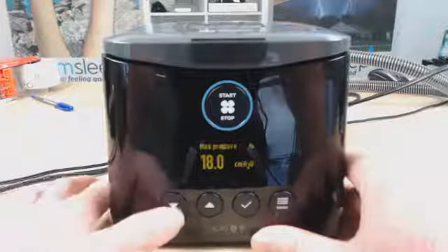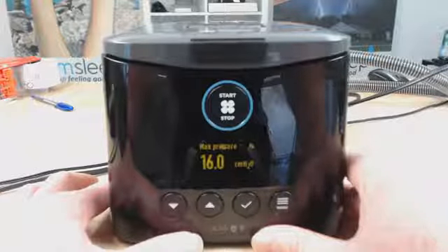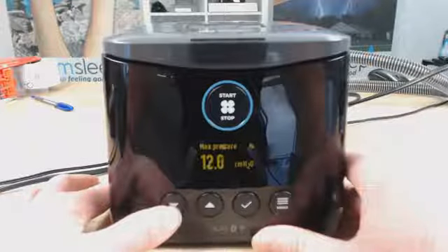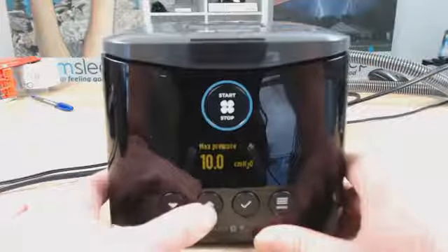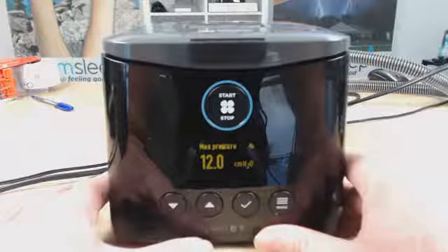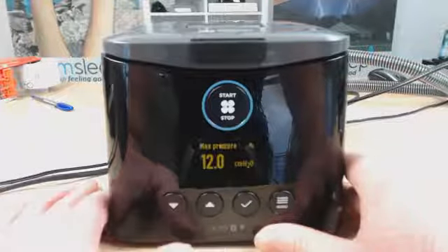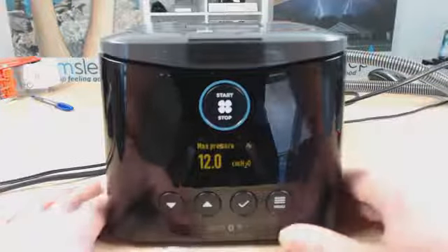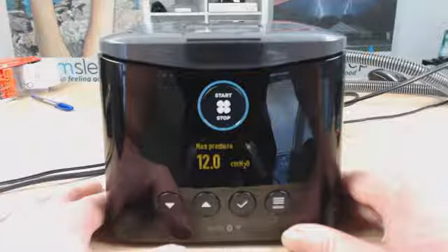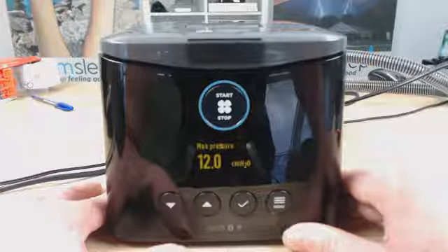But saying that, this can be a handy level to change if you're really struggling with the therapy pressure. What you can do is bring it down to a level that you're comfortable with, and gradually, as you get more comfortable with the therapy, increase the max pressure as you go. So you're kind of just easing yourself into the therapy. It's a really good way to get patients compliant, and a really good way if you're someone who's really struggling with CPAP, struggling against the pressure, waking up at night time. Bring the cap down a little bit and pressure down, and then gradually build the pressure back up, the max pressure.